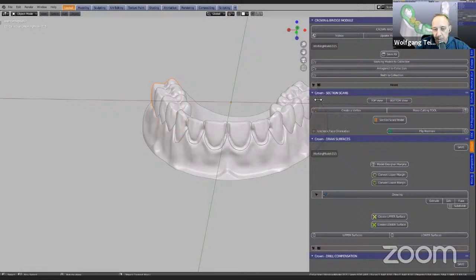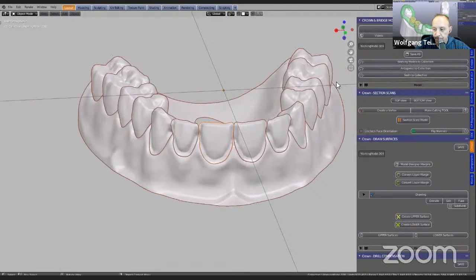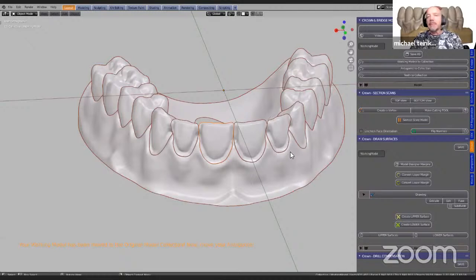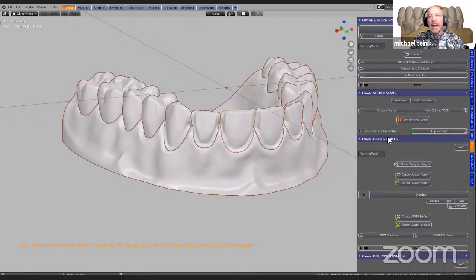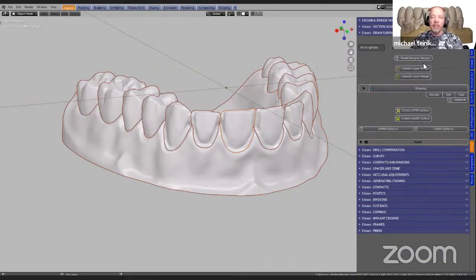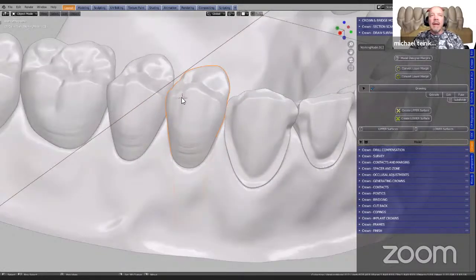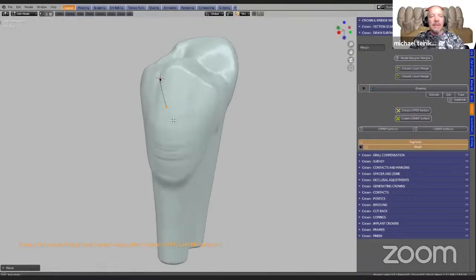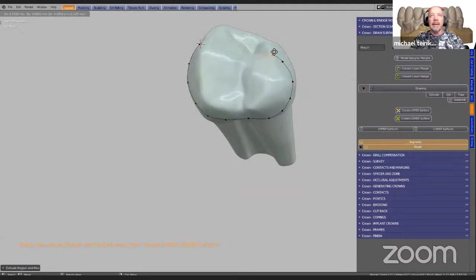So Michael, if you want to continue — we've aligned the models into the center of the workspace. From here we're going to go into the crown and bridge work module. Blender has different layers, a layering system, so we get to see things in different layers. But we're going straight into making these veneers. The first thing we want to do is collapse any menus we don't need and focus on the ones we do need. We're going to start outlining. What we've included is outlining of the contact areas, which is very important because we use the contact area to make a model so we can focus on our contacts when we finish these veneers.